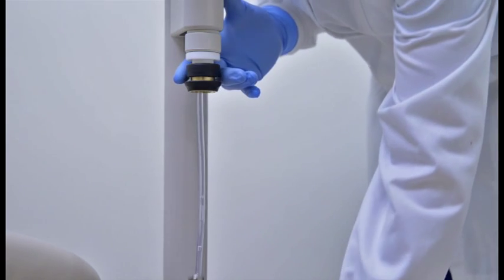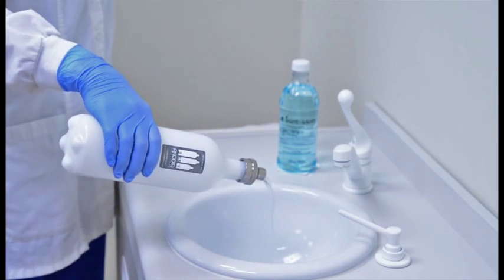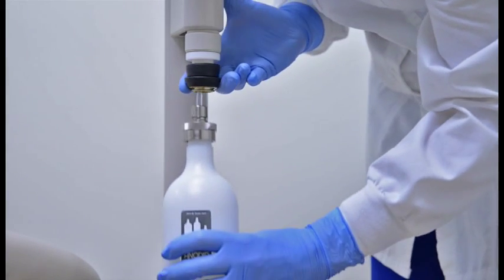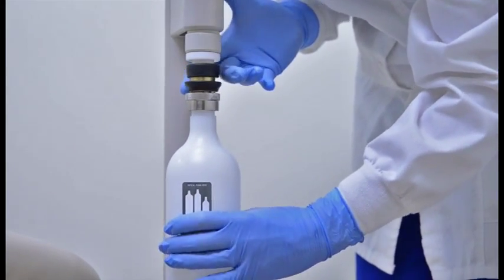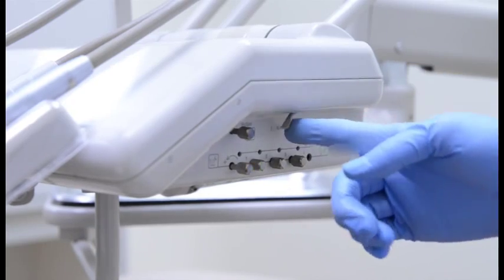Remove the bottle from the dental unit and pour out all of the water in the nearest sink. Connect the empty bottle back onto the dental unit. Turn the dental unit back on.